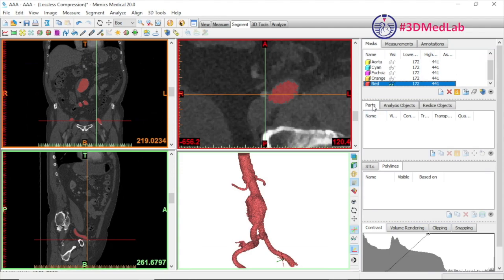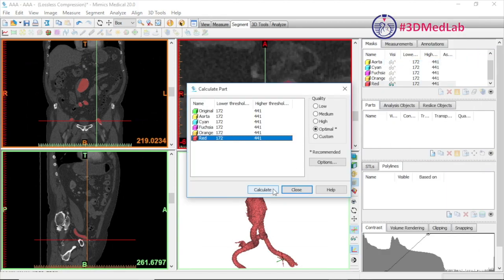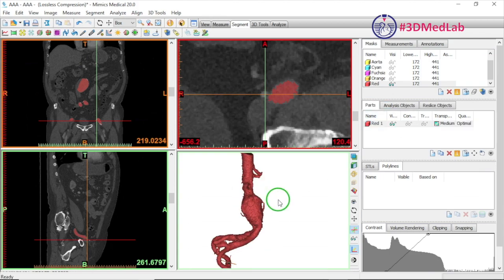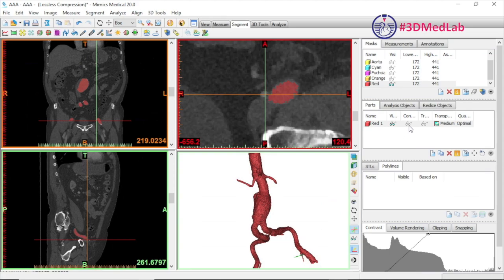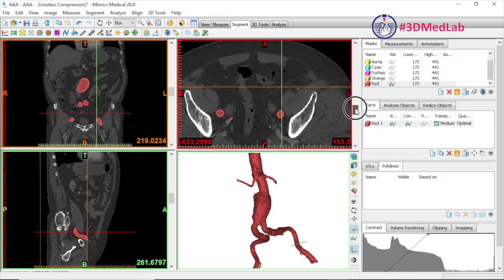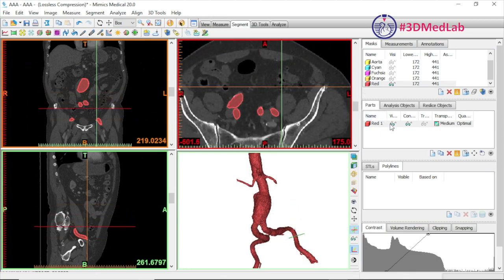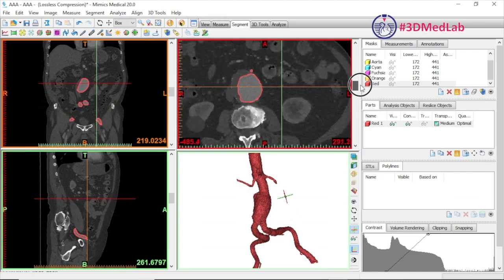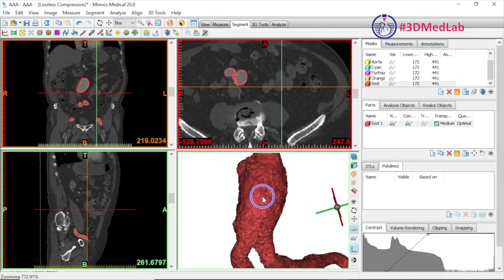Next we create a part by right-clicking on the red segmentation mask and using the standard settings. This will calculate a 3D model for us — we can turn the visibility on and off. You'll also see contour lines, which are the outside edges of the part overlaid on top of the segmented mask. If we turn everything off except for that contour line, we can compare it to the edges of our anatomical aorta.